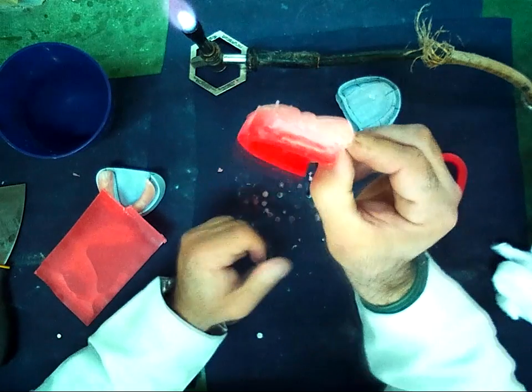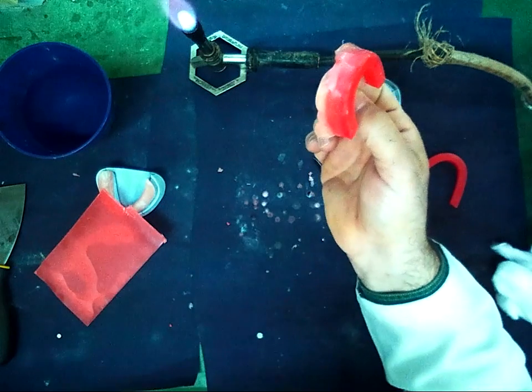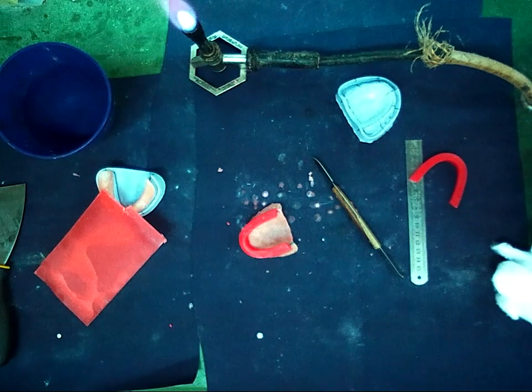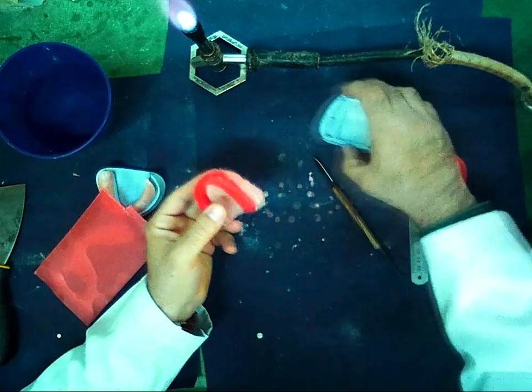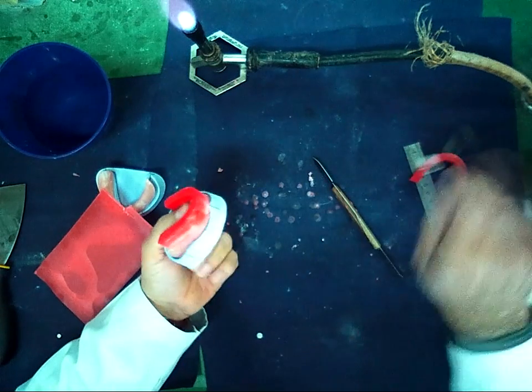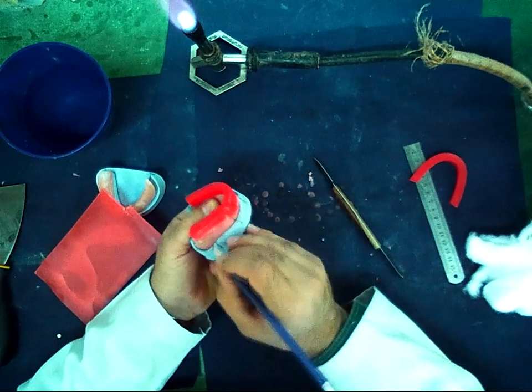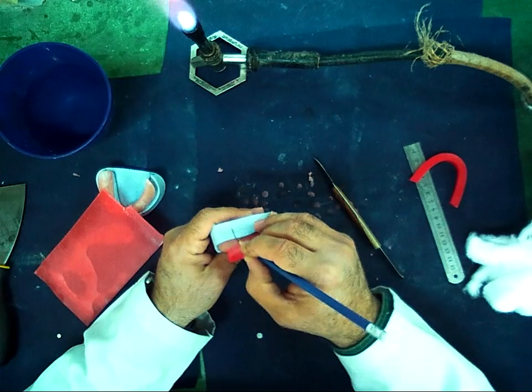As we see, we filled the spaces between the wax and the record base. Now we must take our measurement. I should transfer this line from the cast to the record base to make the measurement. The canine line and the molar line on both sides.